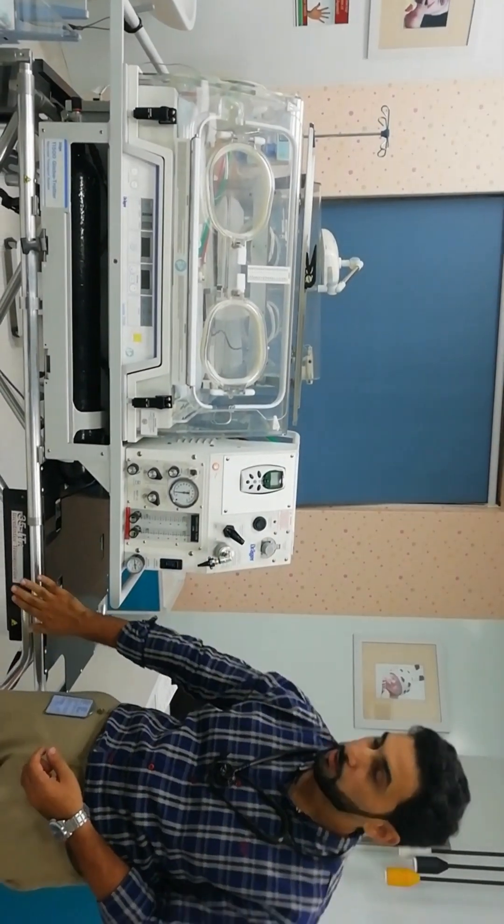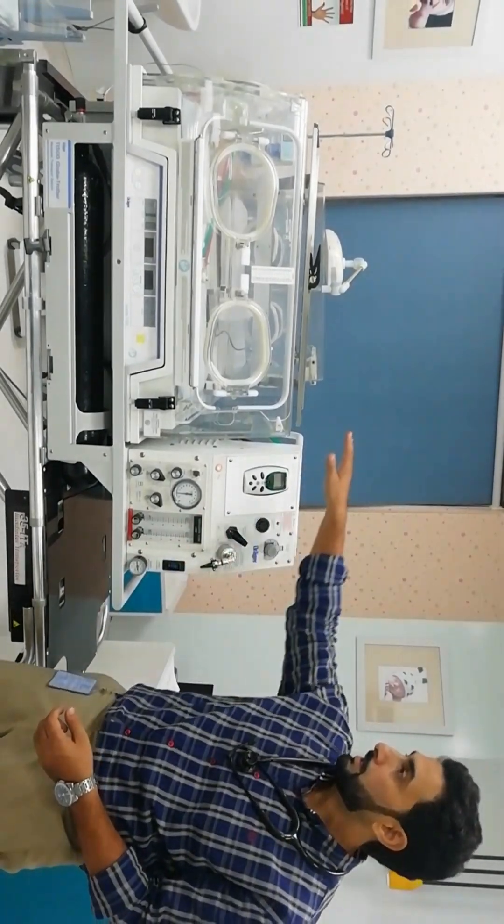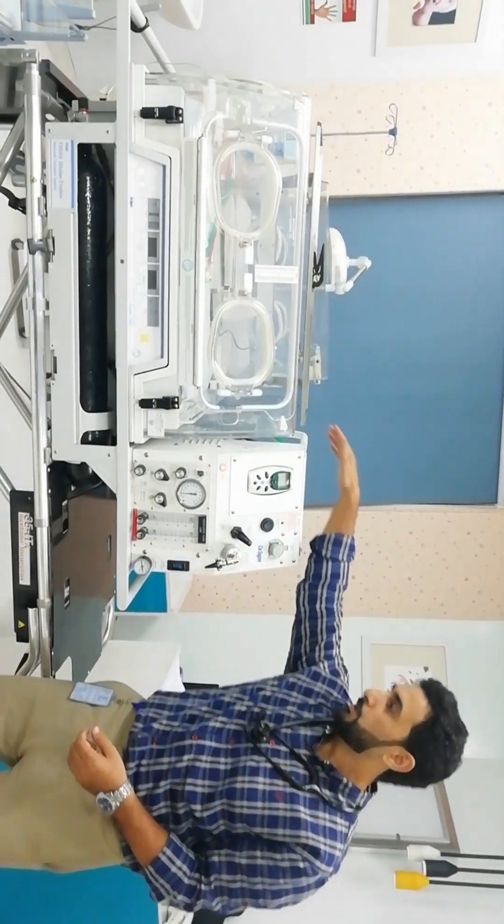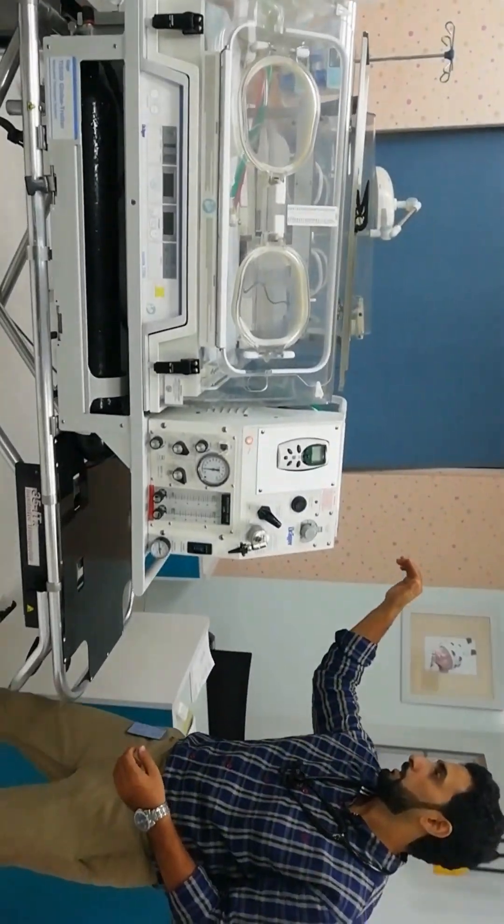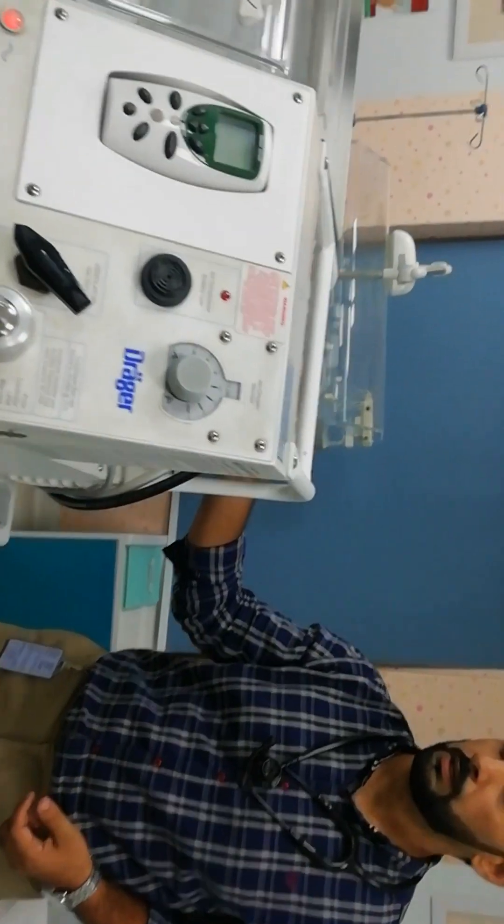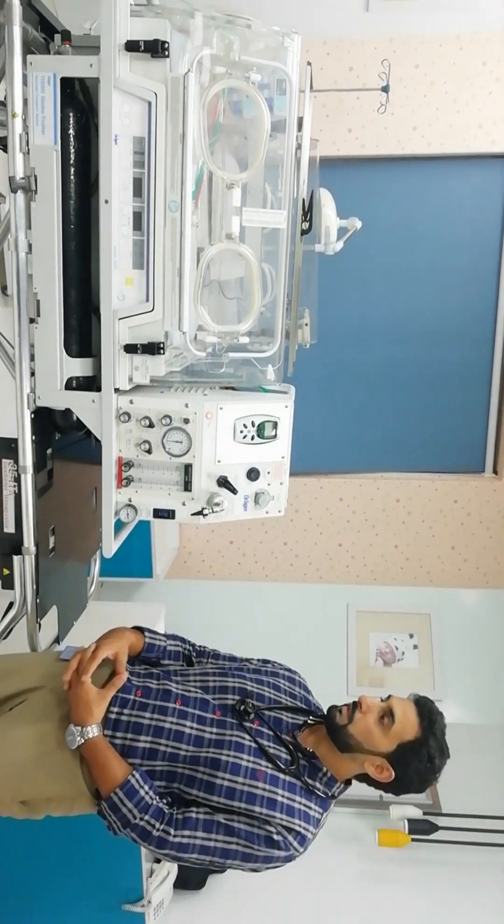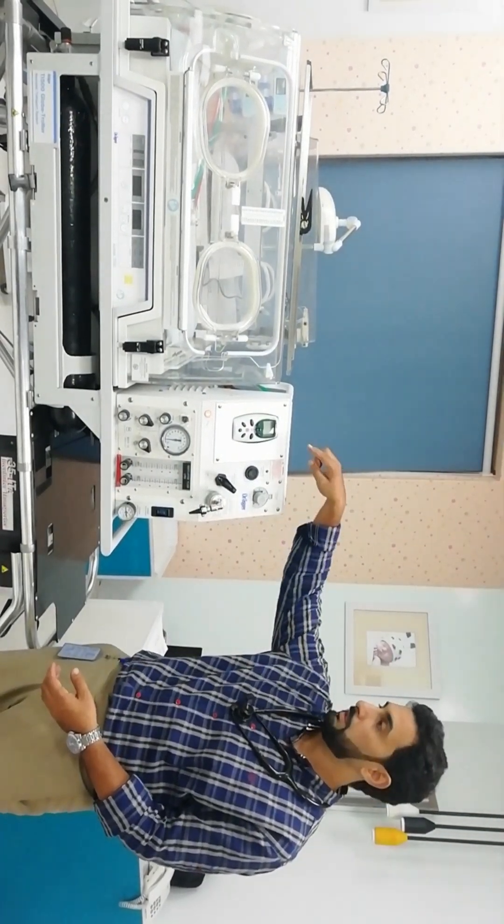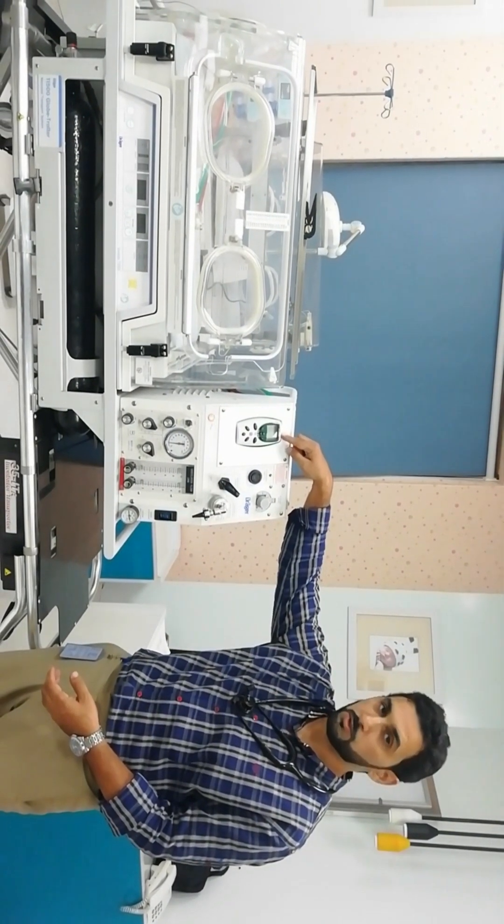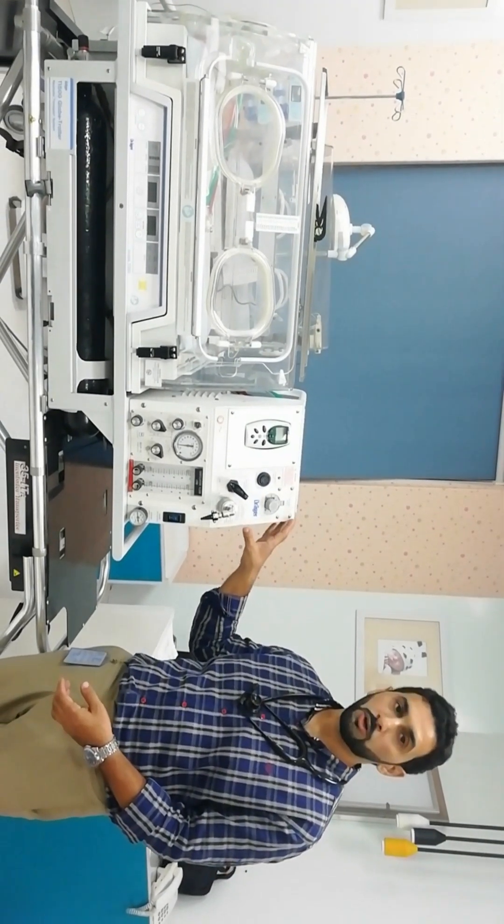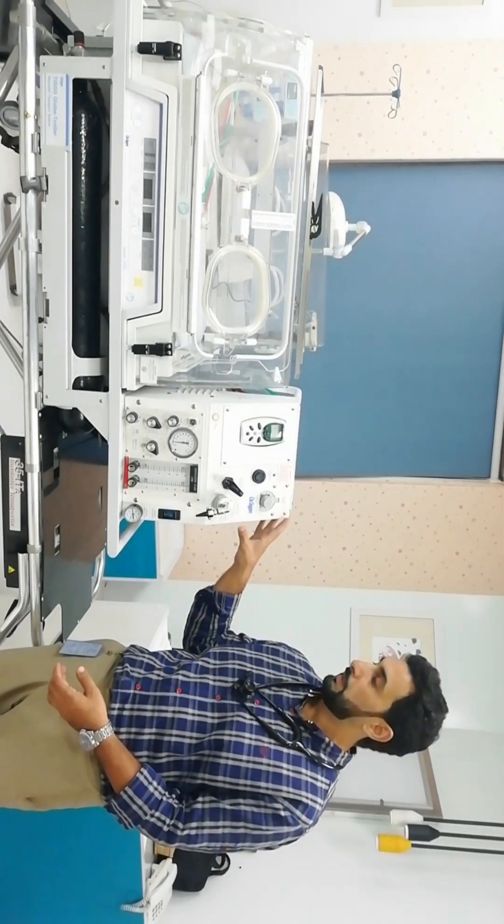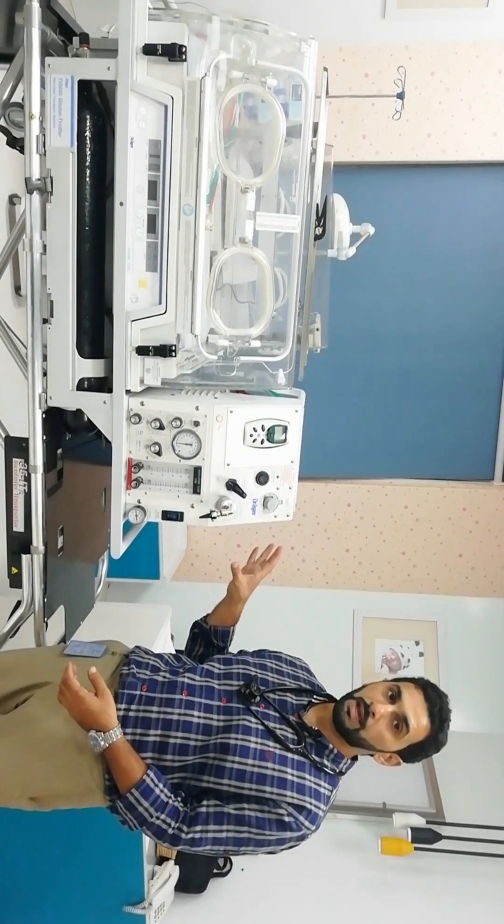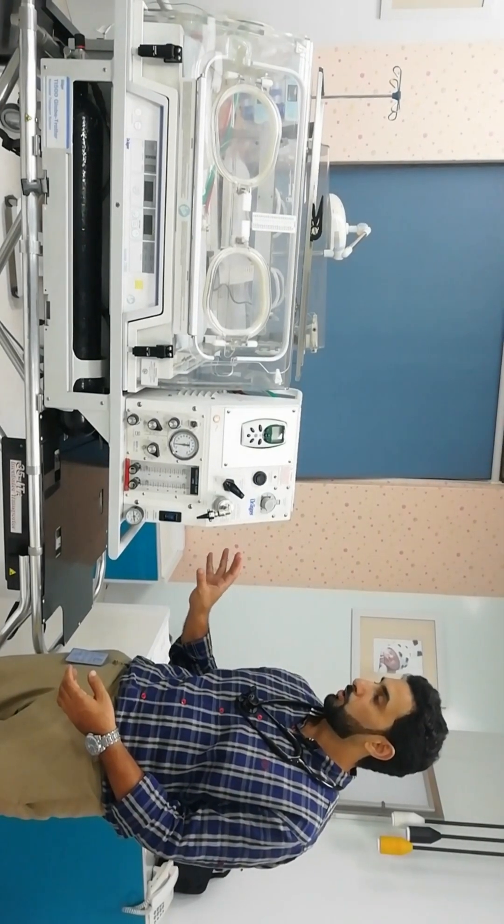a modular frame and accessory shelf, and a suction pump. With the mechanical ventilator we have an oxygen analyzing system and an air-oxygen blender. In our system we have an accessory option of an air compressor which provides us with medical grade air.